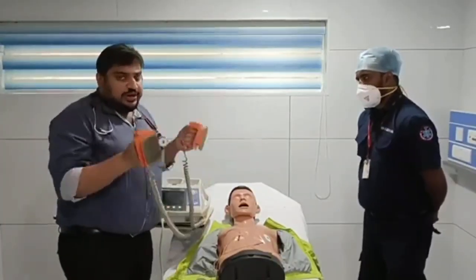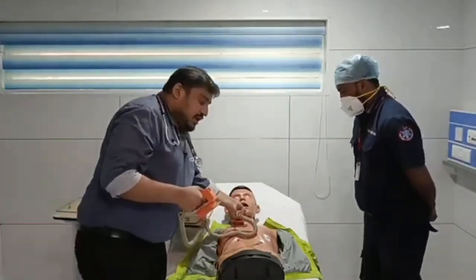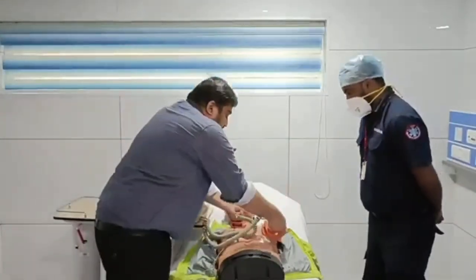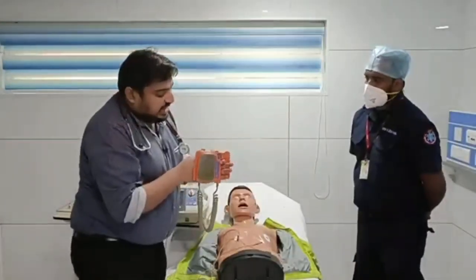That is most important: adequate jelly you have applied, and one paddle you need to keep over the right. So it is written here, you can see it is sternum, it is written. So the right side of the sternum and the apex you need to keep, and you have to make sure that there is good contact. You can see some three light dots here.